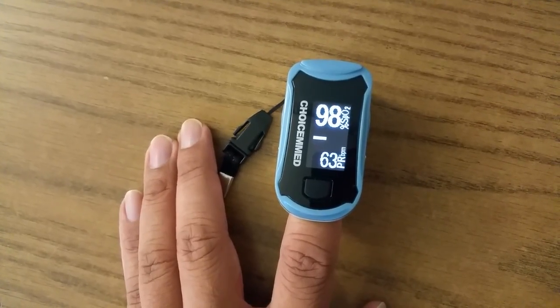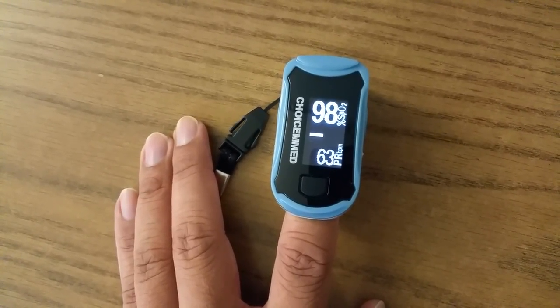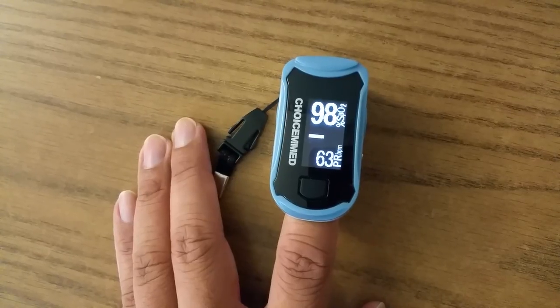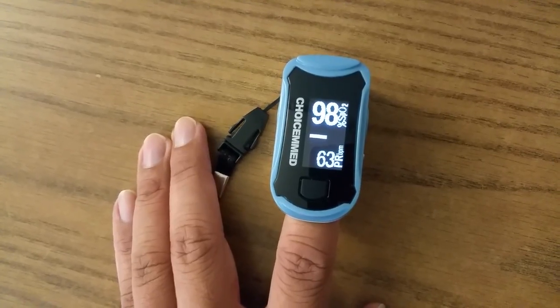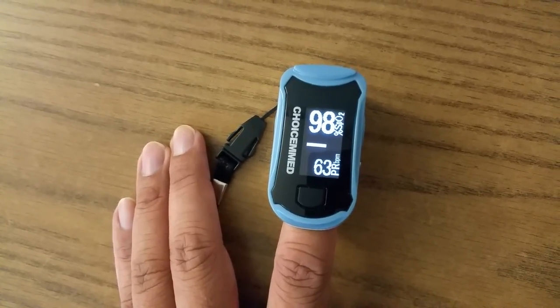Hi, my name is Ravi and today I am going to explain to you about the meaning of your pulse oximeter reading.